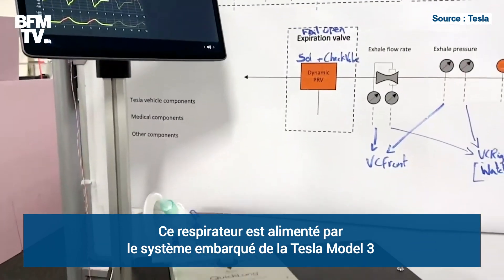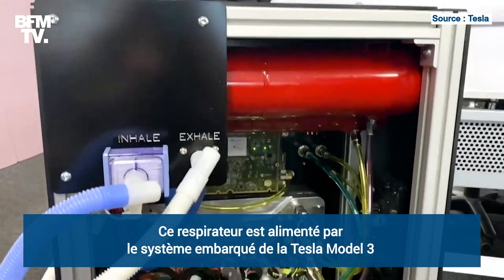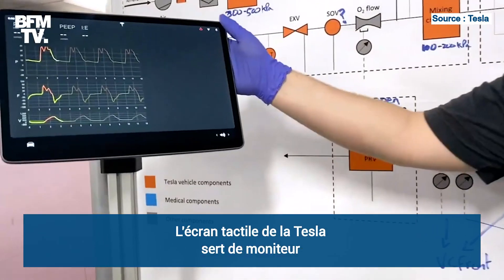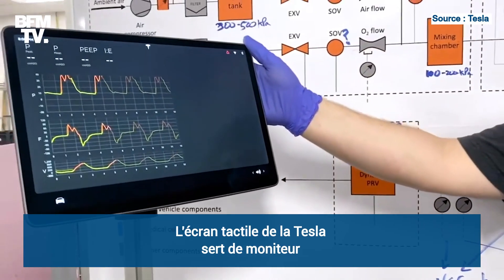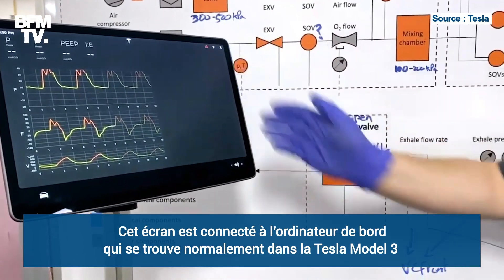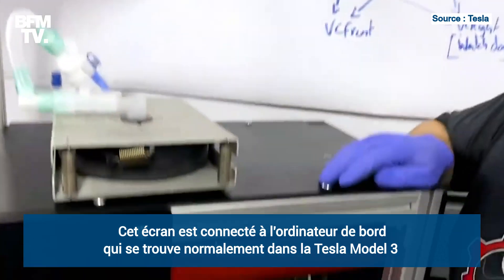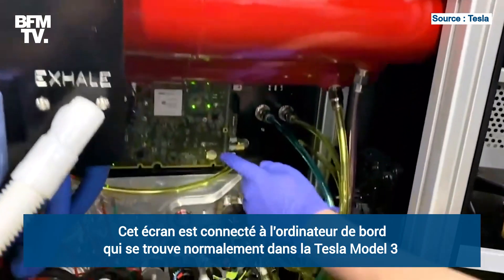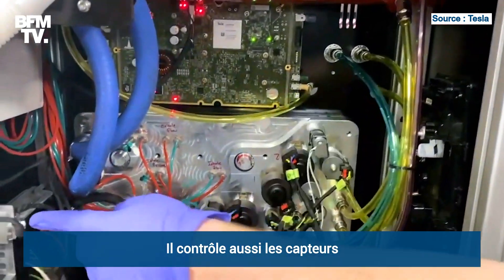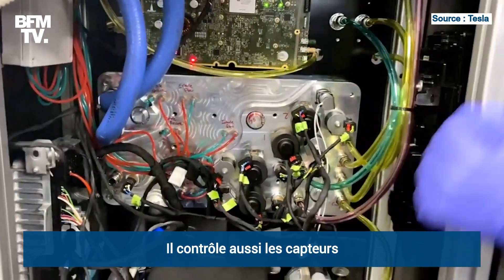This system is powered by the Model 3 infotainment system. Up here at the top, we have a Model 3 center display touchscreen. This touchscreen is powered by the Model 3 infotainment computer in here, which controls Model 3 vehicle controllers.